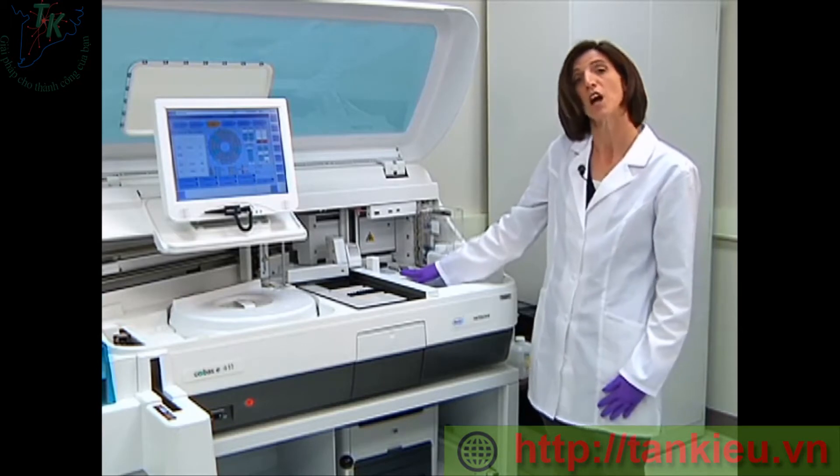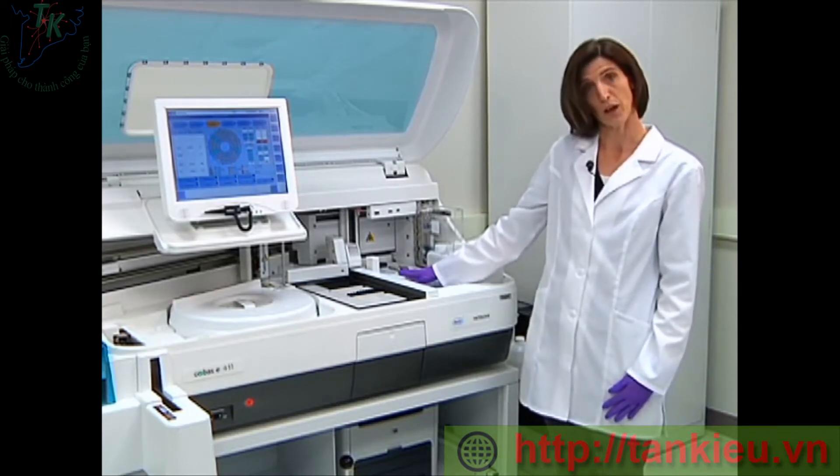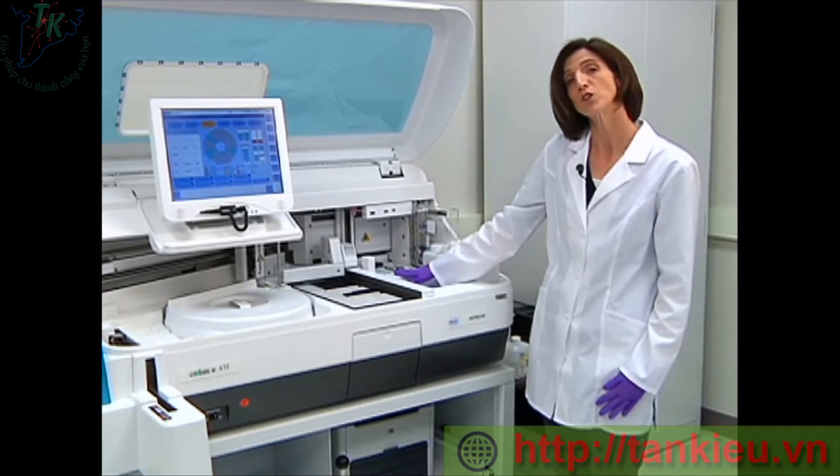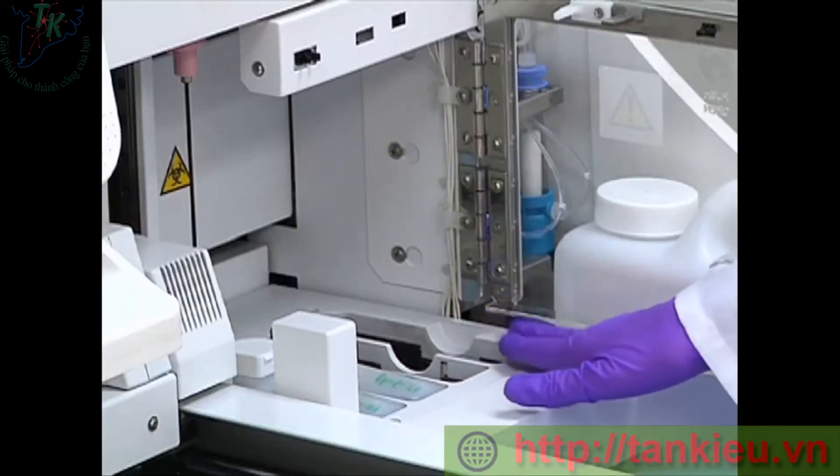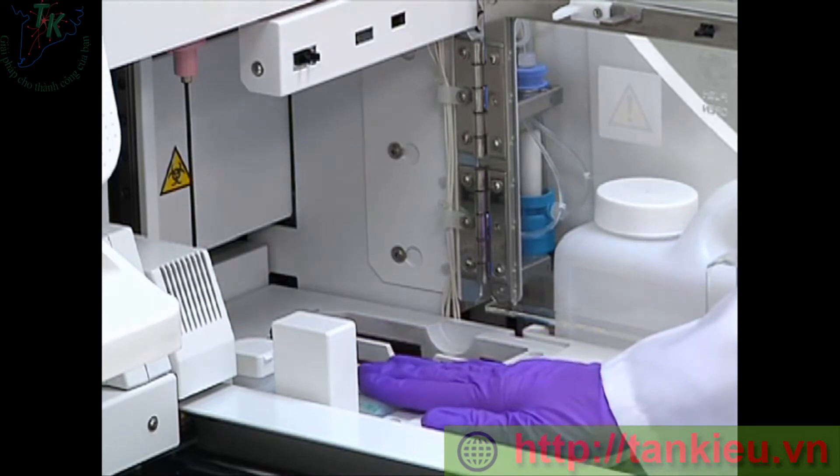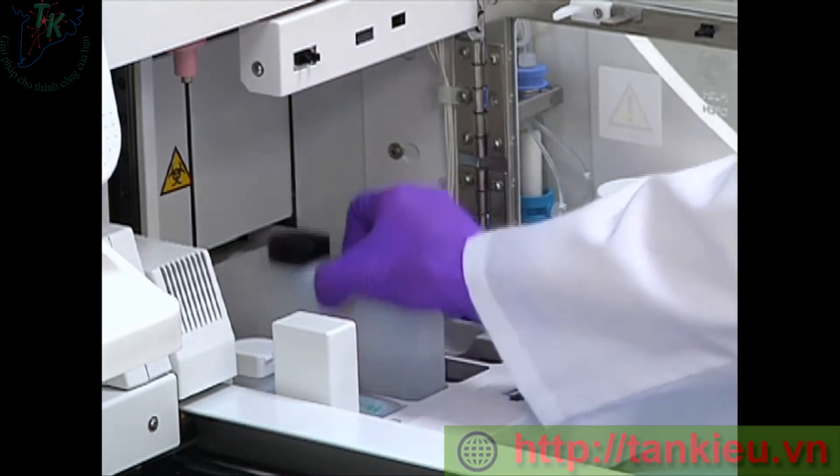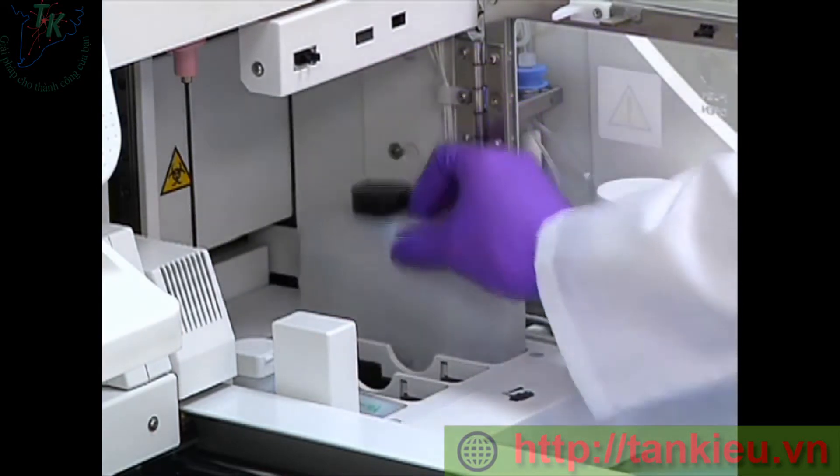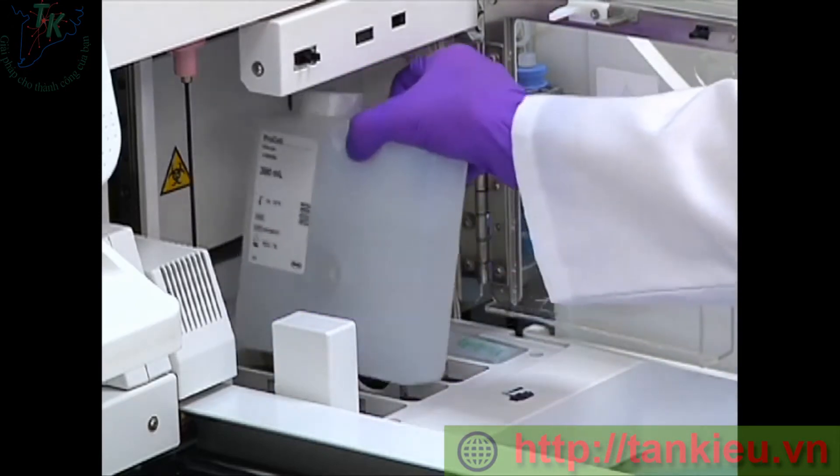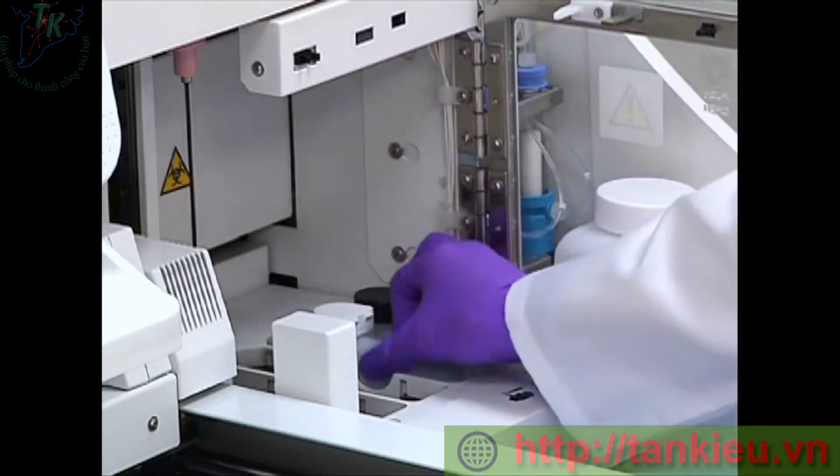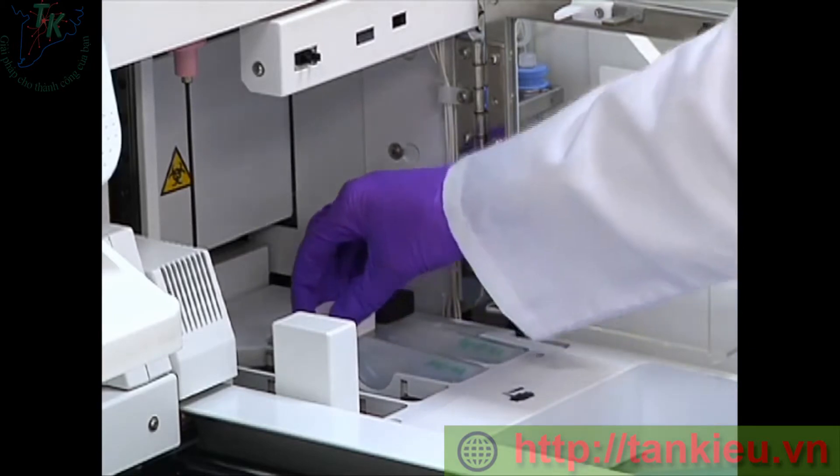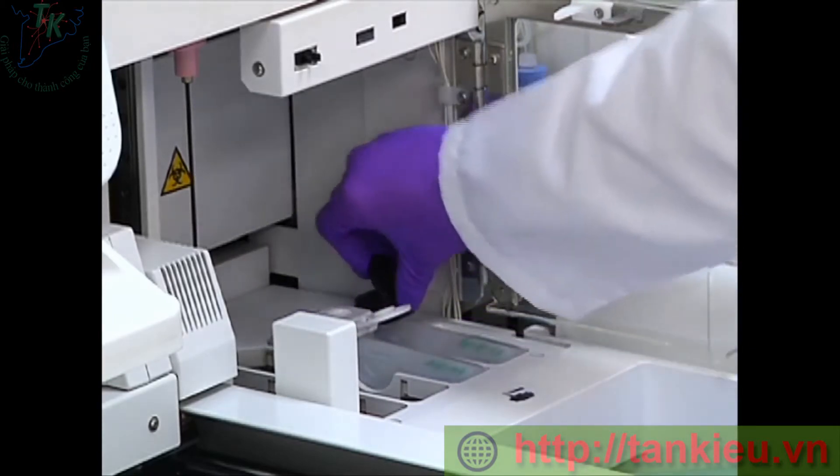For our demonstration, I'm going to load an additional bottle set. The instrument will always use the bottle set that is in the farthest right position. So I'm going to move my partially filled bottles that are currently on board into the farthest right positions. Those positions are keyed so the bottles only fit in one way, and I will open the caps.